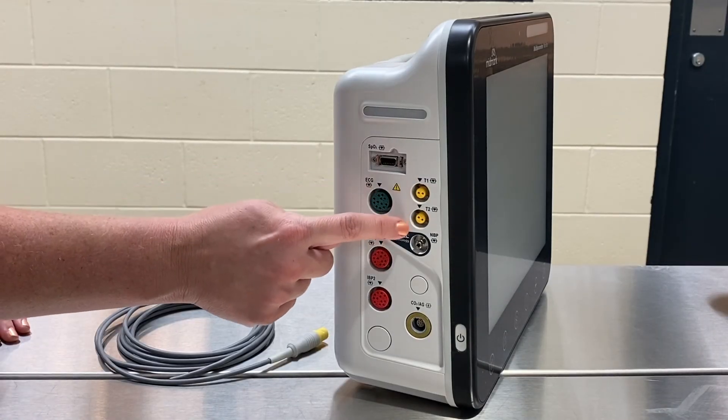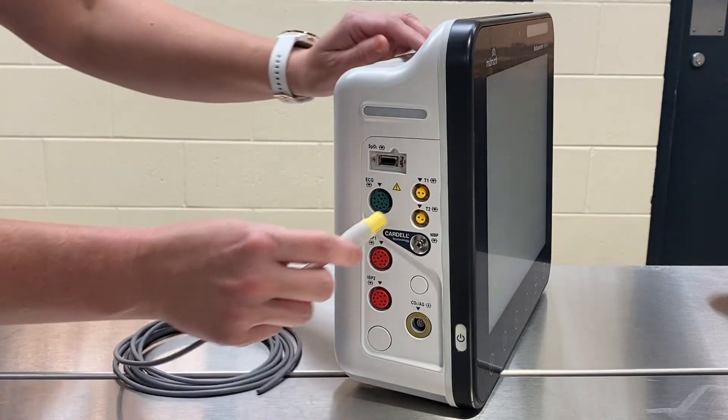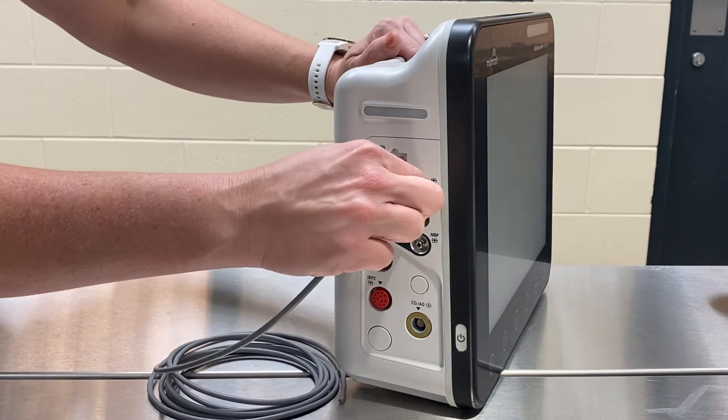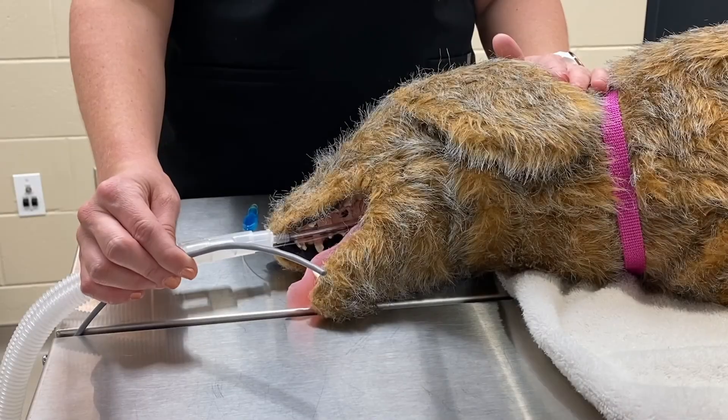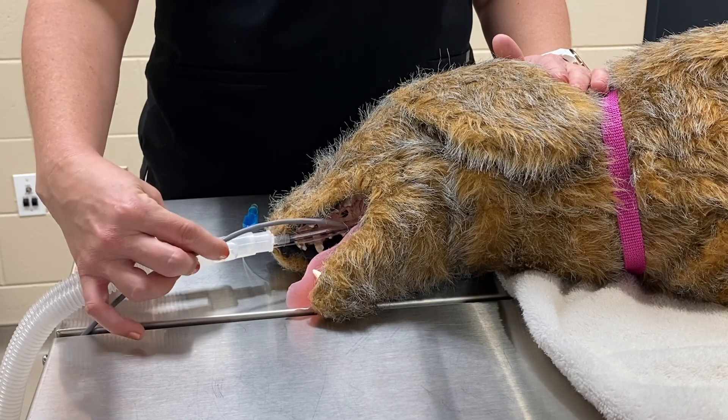Plug the temperature probe into either the temp 1 or temp 2 port on the monitor. The temperature probe may be used in the esophagus or the rectum.